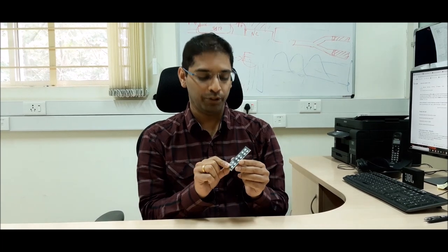The problem that FLIPNAT is aiming to solve is the delivery of diagnostics at scale. Just like the pharma industry has been able to accomplish large-scale delivery of drugs using blister packs, we think that FLIPNAT can be used to deliver diagnostics in a blister pack kind of device. That's a really promising and new idea in this area, and it has attracted a lot of attention. We have been contacted by several people asking us to collaborate to do larger scale studies, and we are really excited about the future of this device.